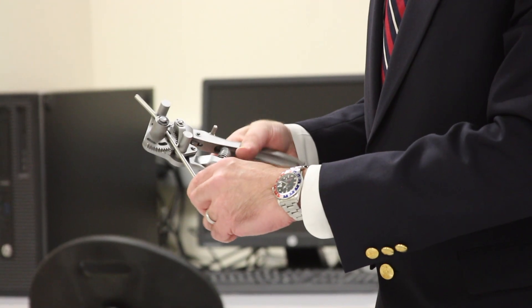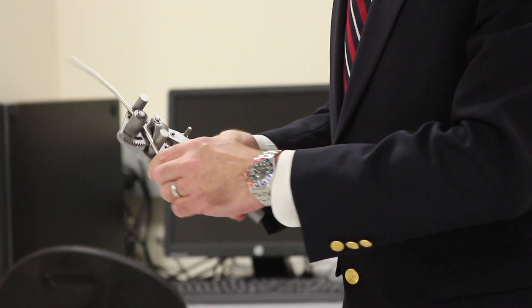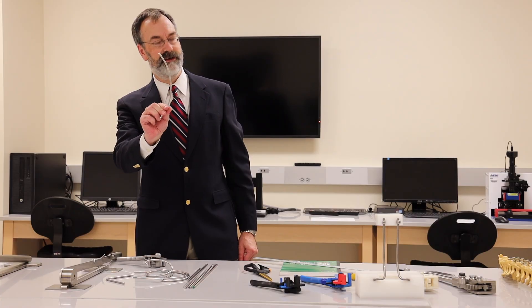I'm going to put a gentle curve — a succession of small bends — into the rod. I'm going to use the full squeeze feature to release it. And you can see we come up with a nice gentle bend of the rod as well, very quickly, very easily.